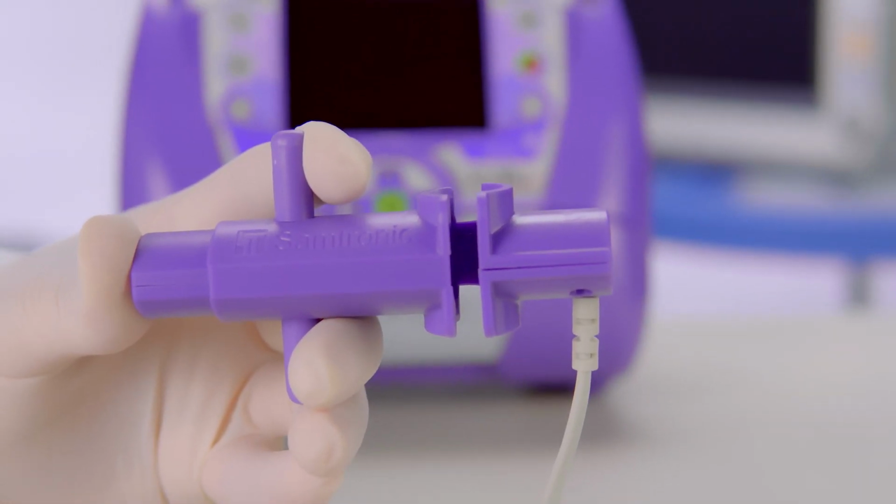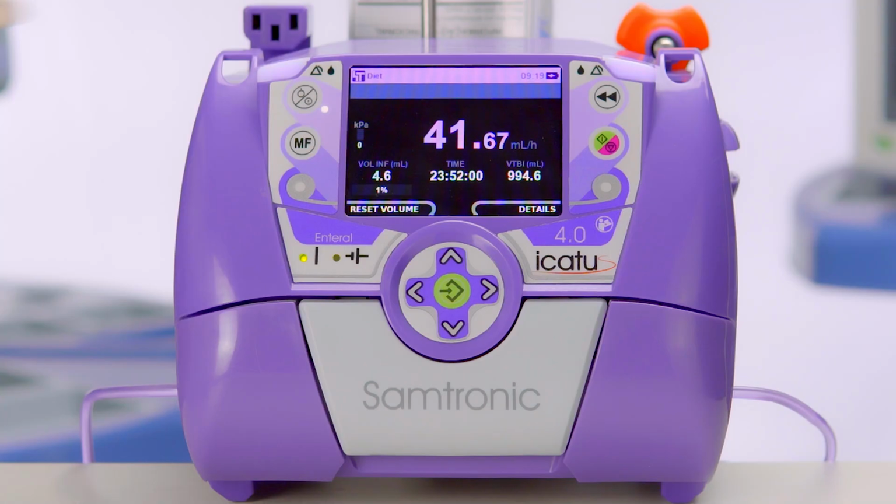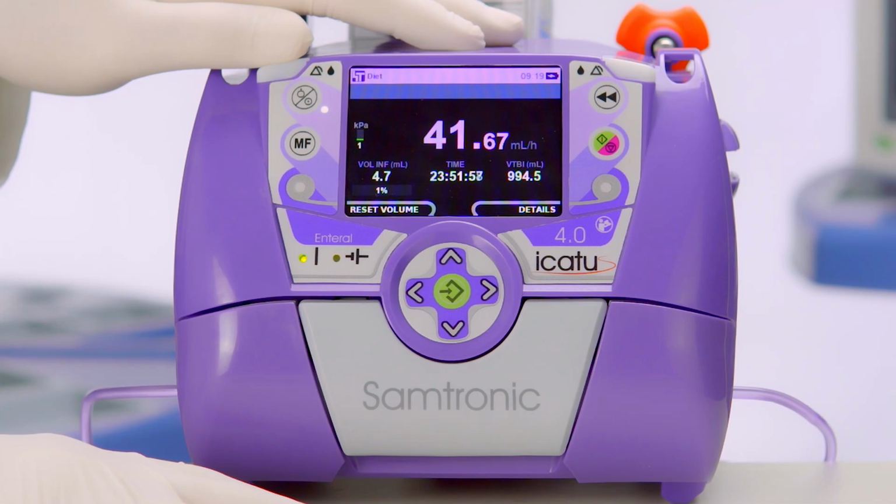We can set the transport mode to keep the drop sensor off for 2 hours. It's used only when the drop sensor is installed, and its function is to allow the patient to walk inside the hospital or to be transported in an ambulance. It's important to remind that in this period the pump will not detect free flow or empty bottle.